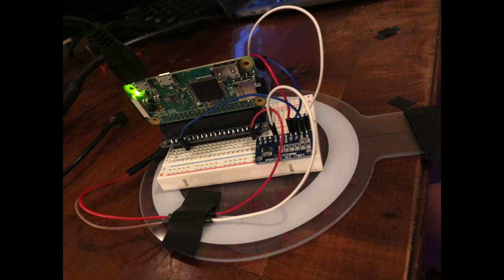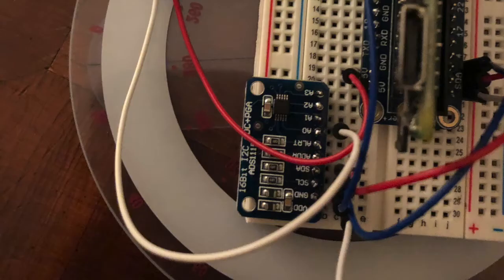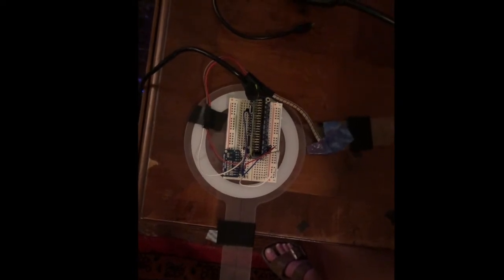This is our IoT Goniometer, and it's made from a plastic goniometer, a Raspberry Pi, a flex sensor, and an analog to digital converter. The flex sensor is attached to two parts of the plastic goniometer and bends and straightens when the goniometer moves. It's most straight around 90 degrees and most bent at around 30 degrees.